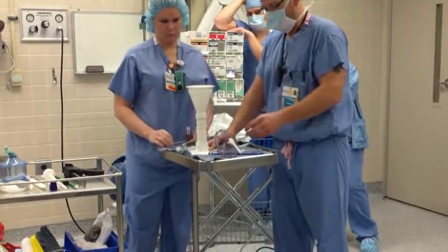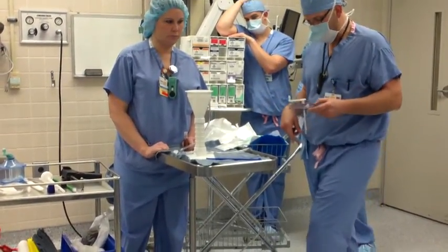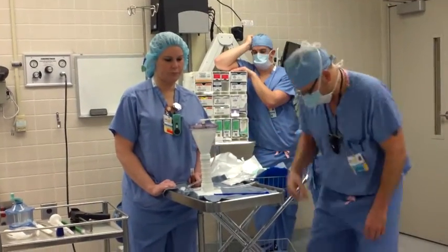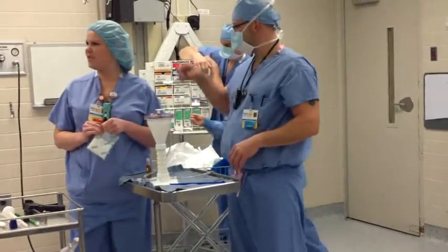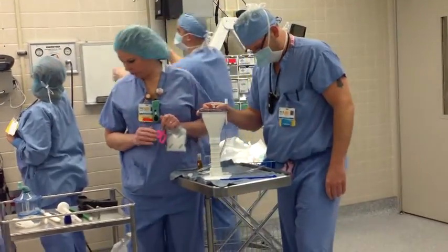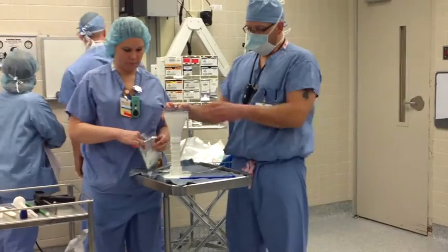When this tower is put together, this is your lid with your paddles to mix with, and there's a little tab on here that releases your pressure. Because you're going to use pressure from here, and that sucks the air out of the chamber in there to make the cement more dense. When this is on and locked in place and actually turned on, it will suck this lid down on there whether it's on correctly or not — but it is good to have it on correctly. Usually you go up to the green mark on here, which is 20, and that's the pressure reading.